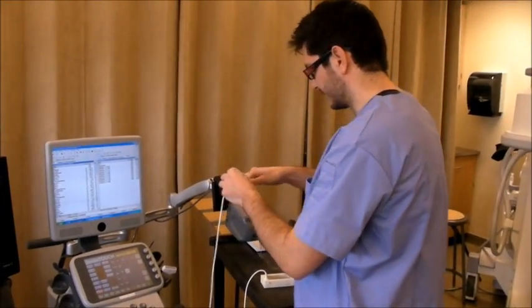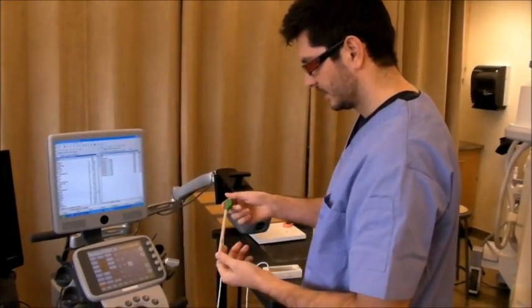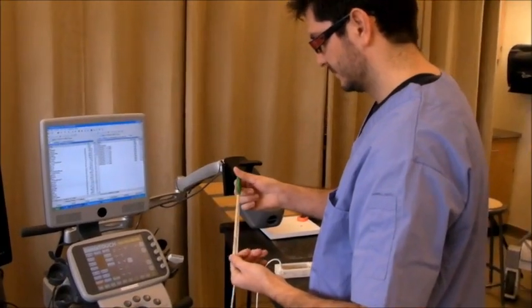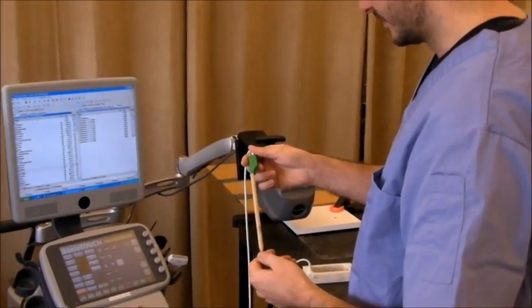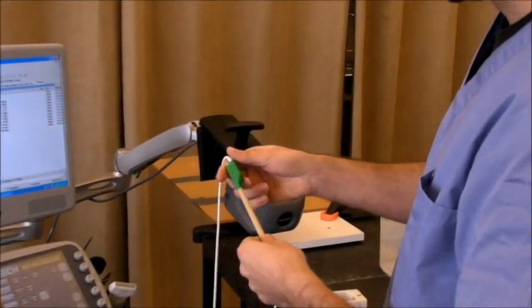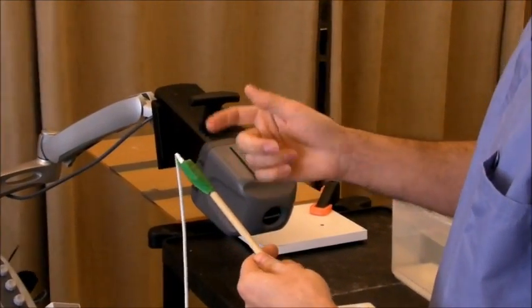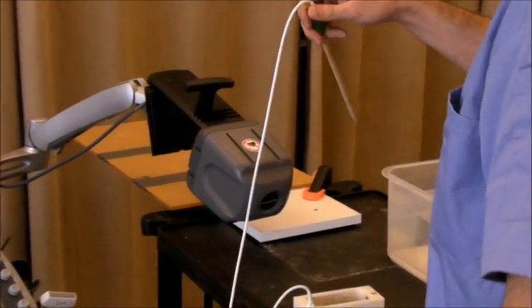We use a very simple custom-made stylus, which is basically a wooden stick with a sensor attached to it.